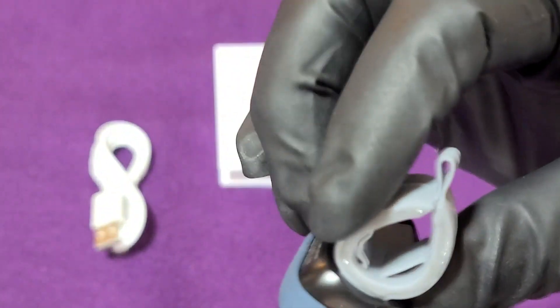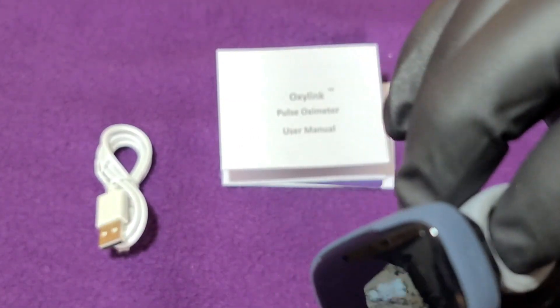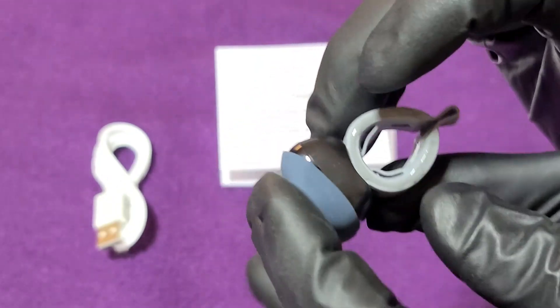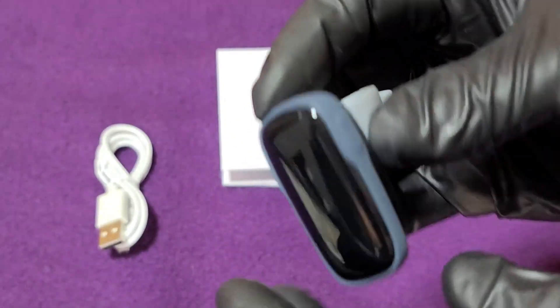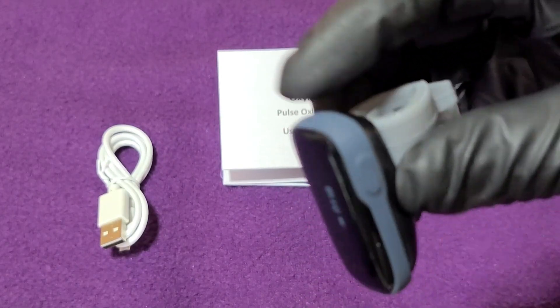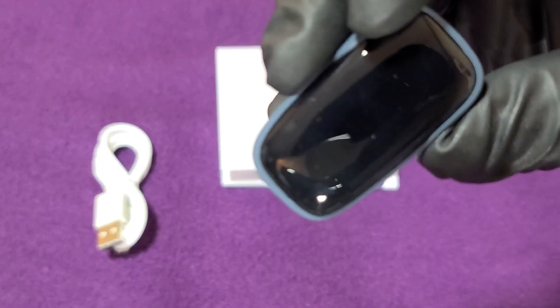Supple right there — soft silicone on your finger, rechargeable. I had to hunt around and find the recharging port right there on the end. I think this band is supposed to stay on there. Made with a raised indentation for your on/off button. App installed.